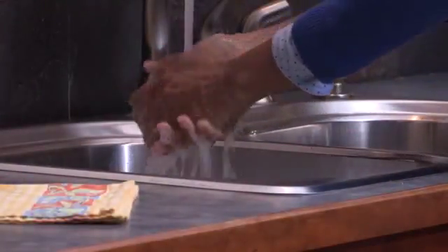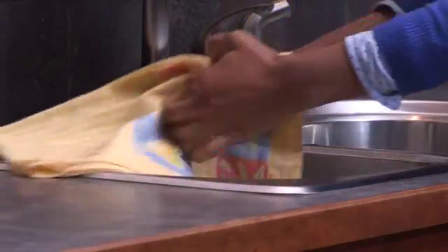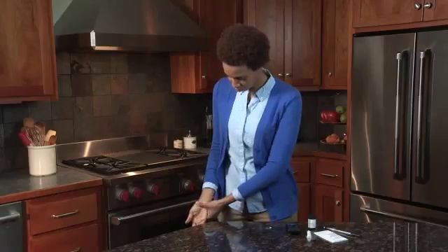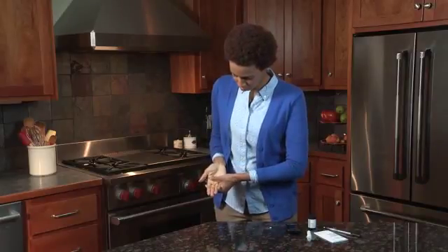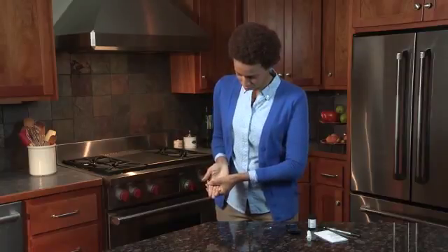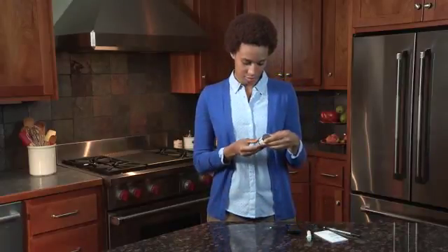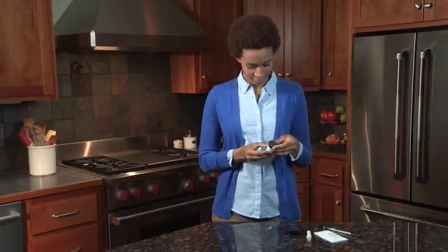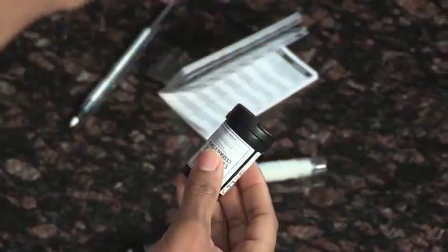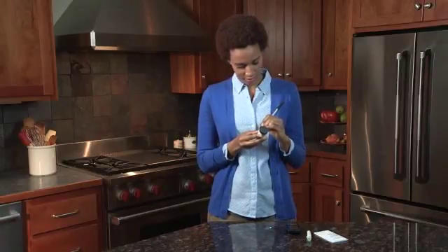Testing Your Blood Glucose. To begin, wash your hands with soap and warm water and dry thoroughly. Warm water stimulates blood flow to the fingers, making it easier to obtain a sample. Next, hang your arm down at the side for 10 to 15 seconds. Massage through the wrist, palm, and then the finger to stimulate blood flow more quickly. Before performing a blood glucose test, check the expiration date printed on the test strip bottle. Do not use expired test strips. When opening a new bottle of test strips, record the date opened on the bottle label. Discard the bottle and any remaining test strips after 3 months from the date you opened the bottle.